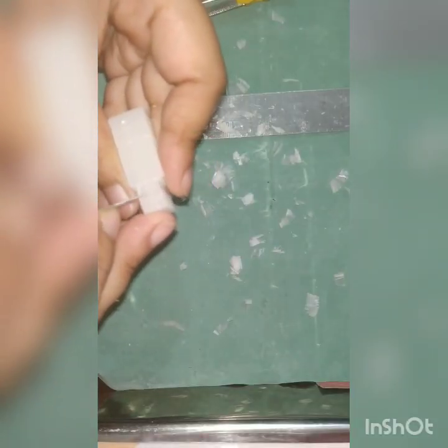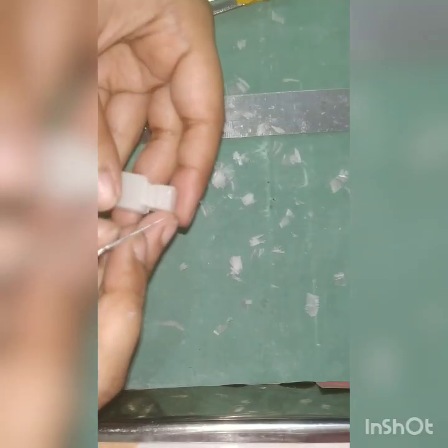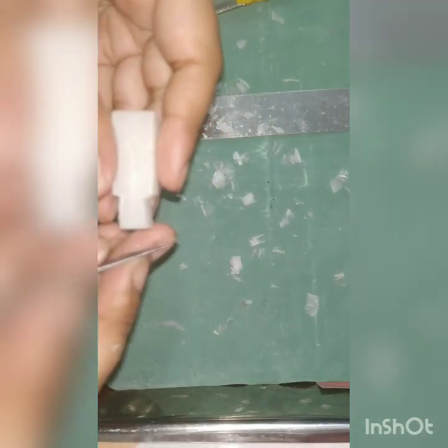Now we'll mark two lines on the buccal surface dividing the crown into three parts, that is the incisal third, middle third and the cervical third. Then we will join the incisal third line to the midline marked on the tooth, indicating the mesial and distal slope, and carve out the excess wax.